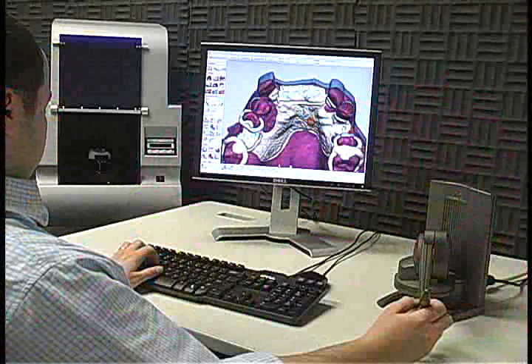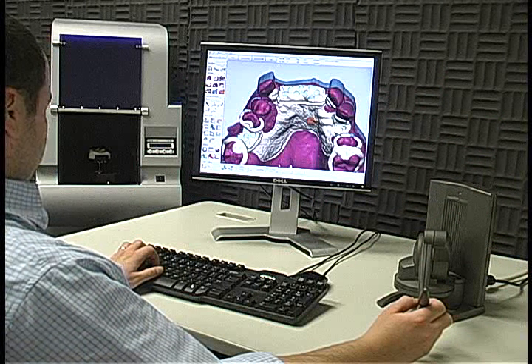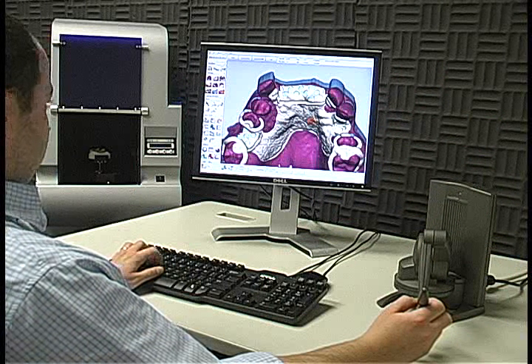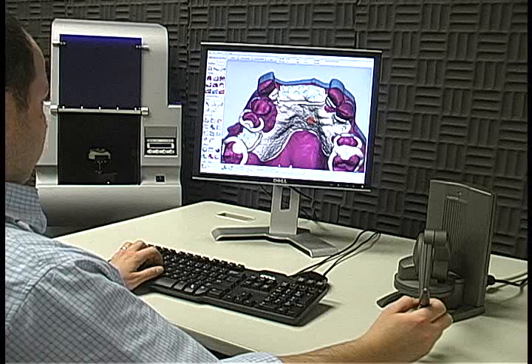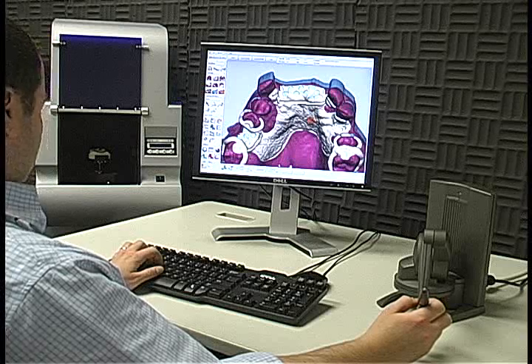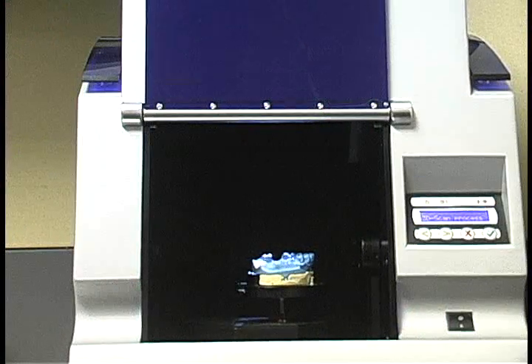But before we start designing, let me mention that the Sensible Dental Lab System integrates the entire scan, design and fabrication process. We start with a scan of the original stone using a rotary white light scanner.